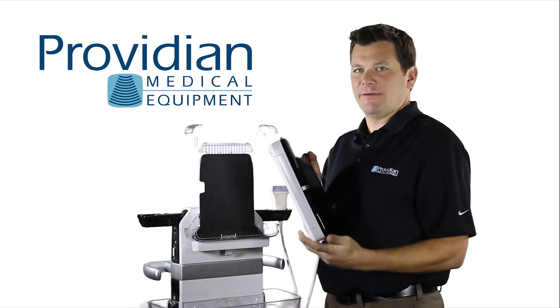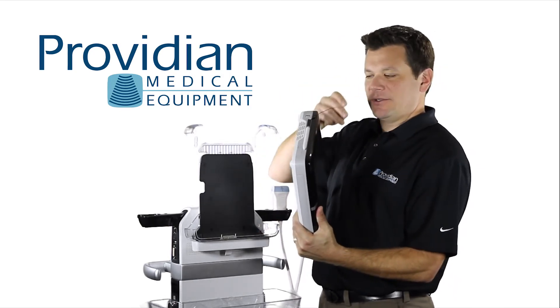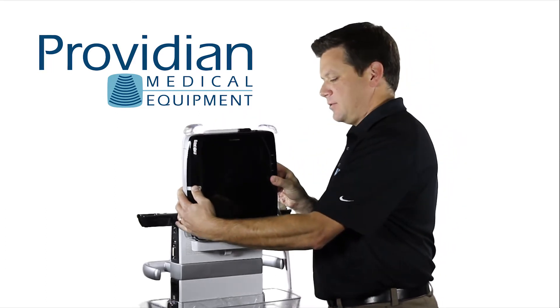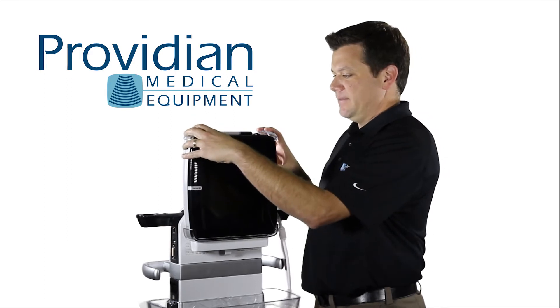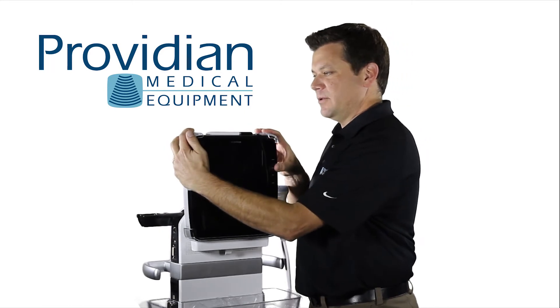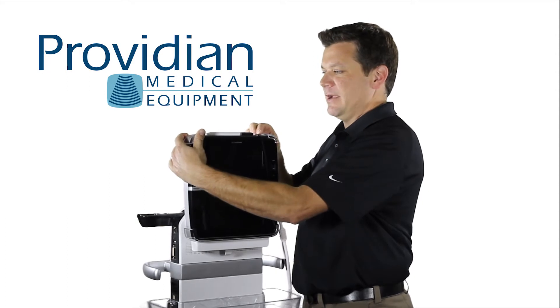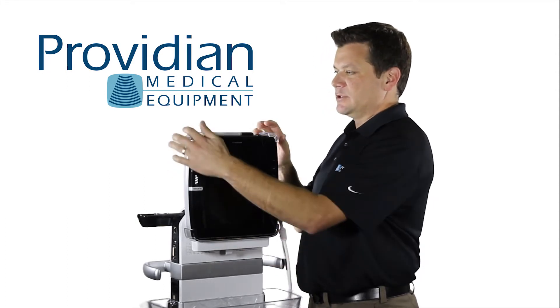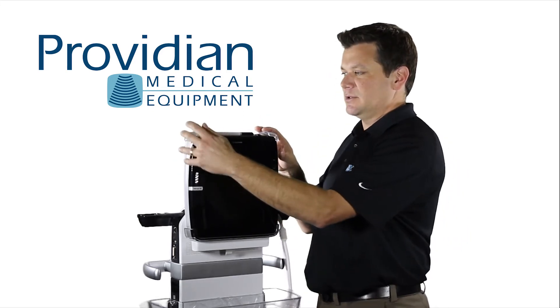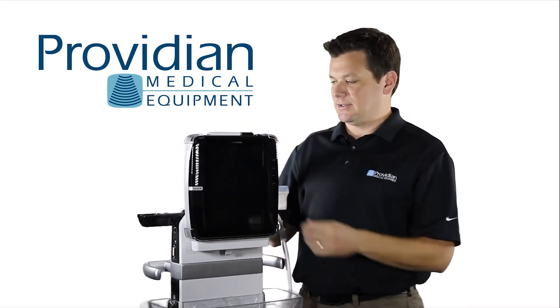You'll see there's a connection at the bottom and obviously the black part faces front. Make sure you have the stylus string in front of the system. You'll place it in its holder in the little cradle here and you'll push down. Make sure the stylus string is not in this place. There are two little finger portions and you'll push down until it clicks. It does take some effort, but when it clicks, you have to make sure this is set. It's real easy to just push it down and leave it a little bit loose — make sure you don't do that so it doesn't loosen up and break the connection. Push down, you'll hear a click and it's all set to go.